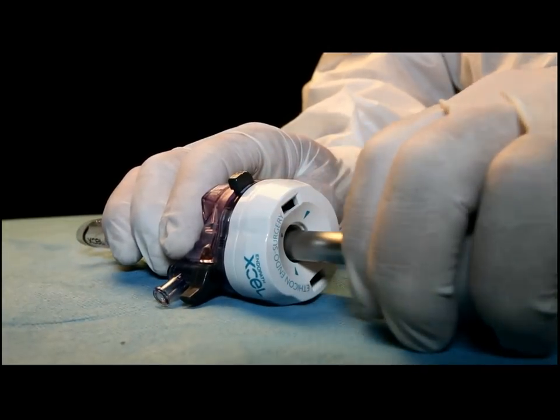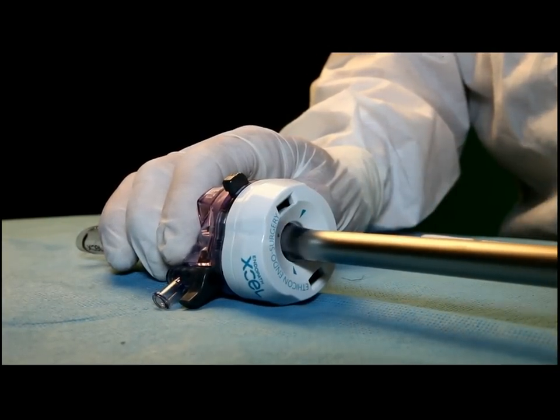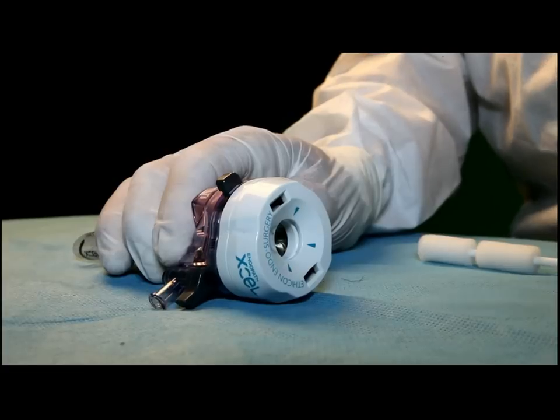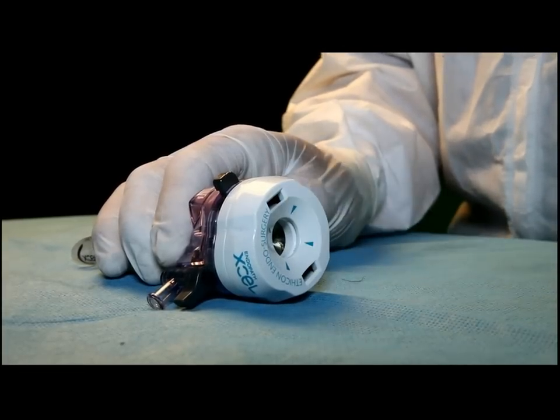Remove the foggy or dirty camera lens. Pick up the DELV, the sterile DELV.